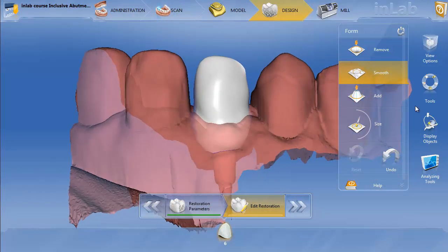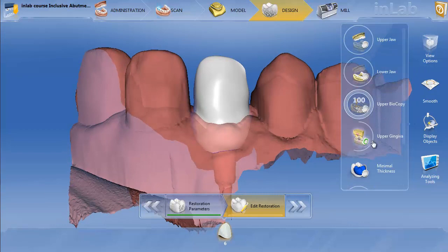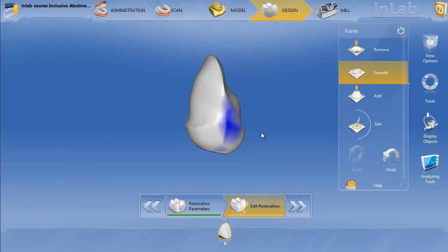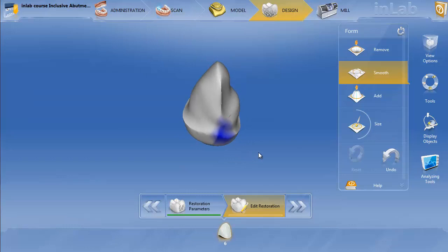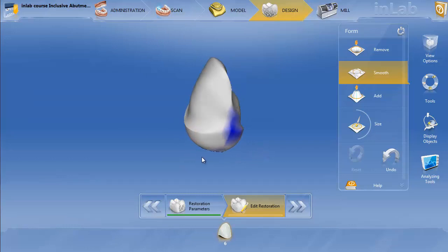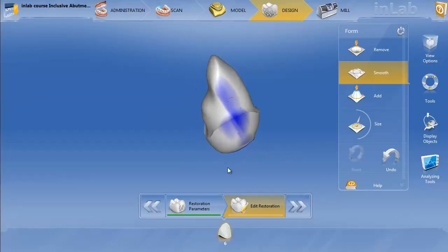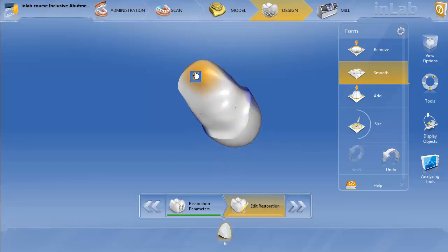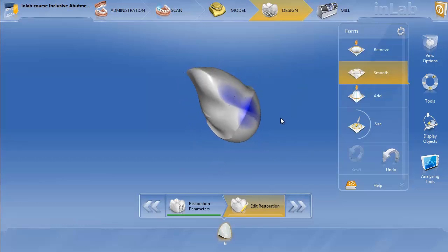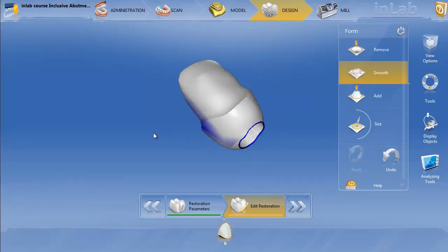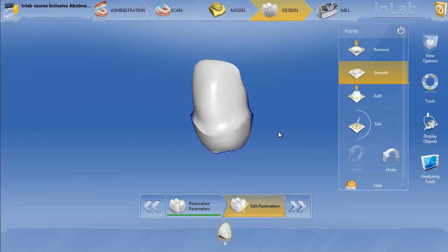Let's go ahead and turn the gingiva off so we can take a look. It looks like the form tool got a little bit into that margin, so you might want to redefine the margin slightly with a burr after you mill this. Now this would be something I'd do for an Astra 3.0 where there's no zirconia option.